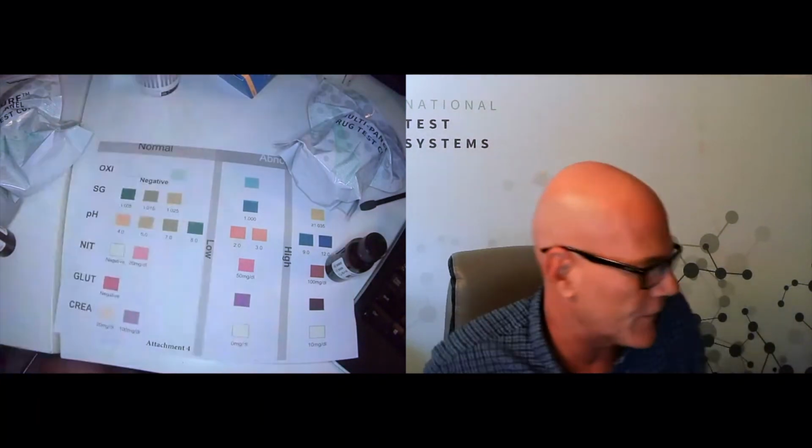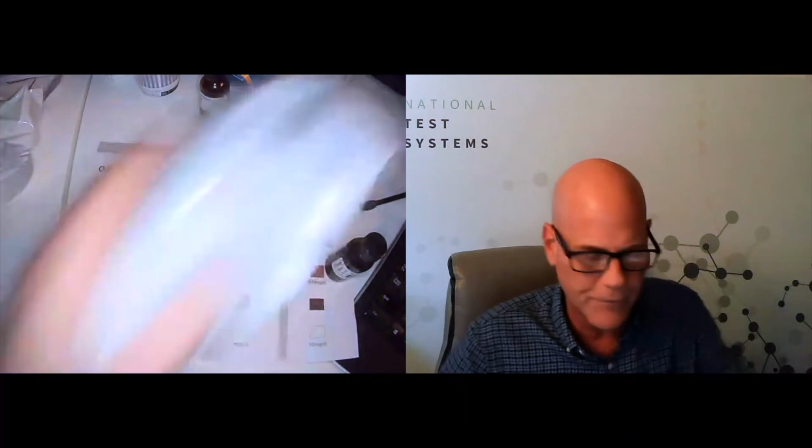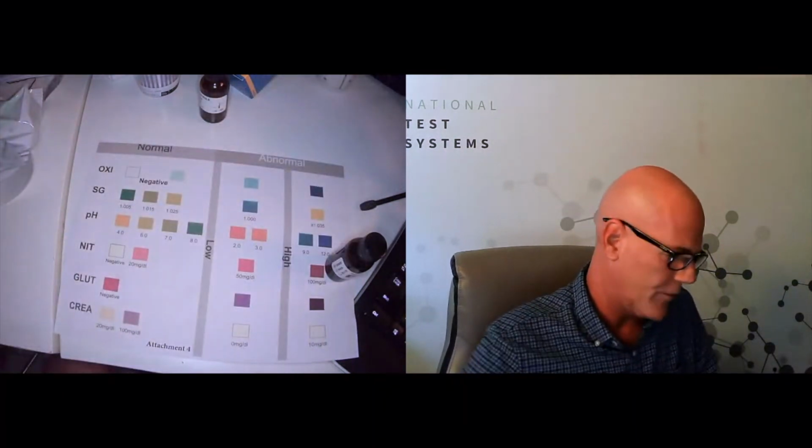So let's go ahead and read the other cup as well. And maybe it'll give us some new insight into some other colors we should be looking for. Go ahead and open this up.